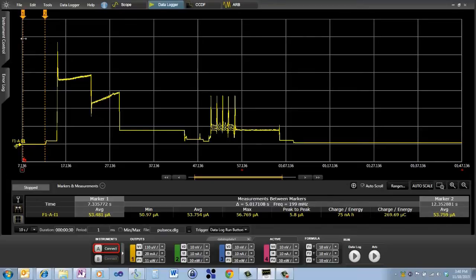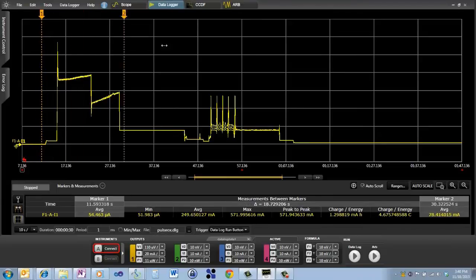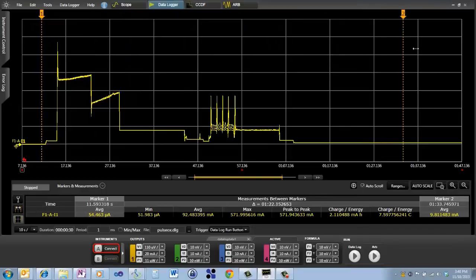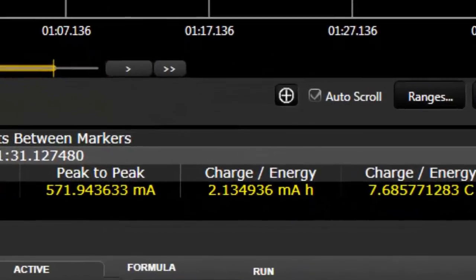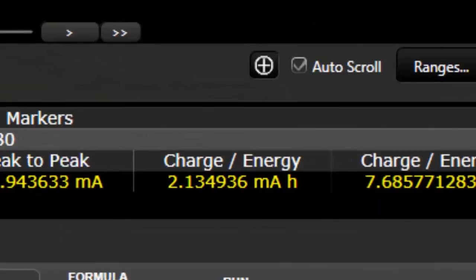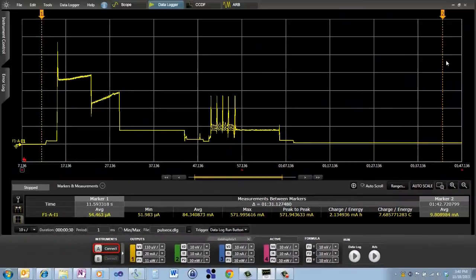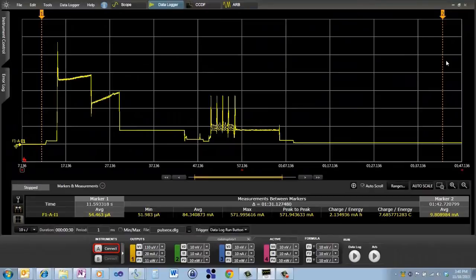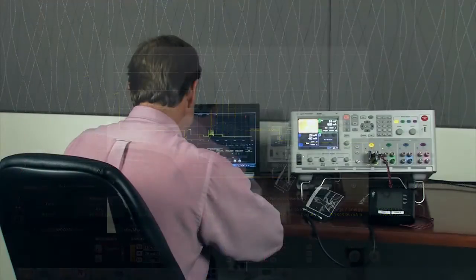So I can go ahead and move these markers throughout the whole cycle of taking my blood pressure and see for every time you take a blood pressure measurement, you're going to be depleting the battery by about 2.1 milliamp hours. So this software gives you very good insight into being able to determine and predict the battery life for your medical device.